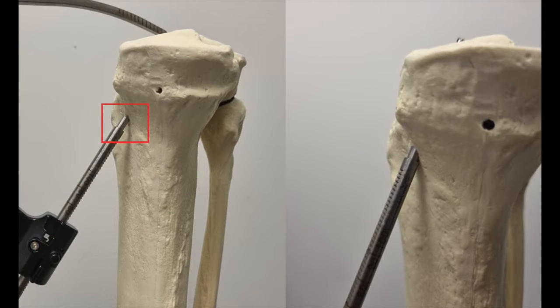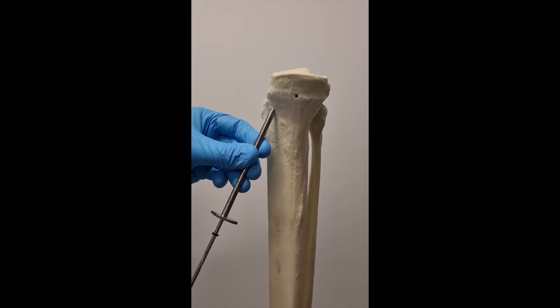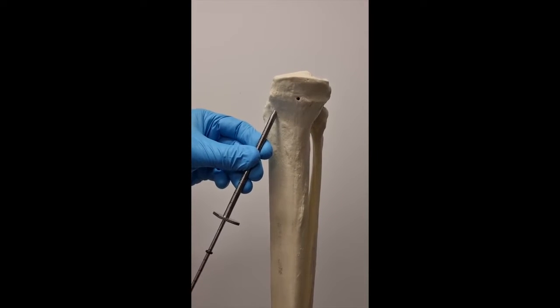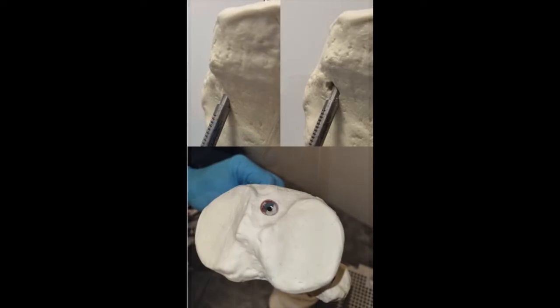The Arthrex Retro Construction Drill Guide has a 7mm step tip designed to prevent the surgeon from retro drilling through the cortex of the tibia. At steeper drill guide angles, however, this guide may not protect the surgeon from retro drilling through the cortex of the tibia. To prevent this complication, we've determined a trigonometric formula which allows the surgeon to calculate a safe tibial tunnel drilling length.